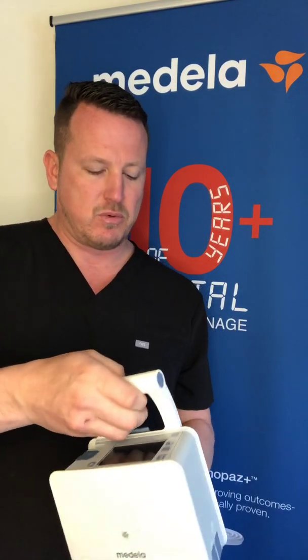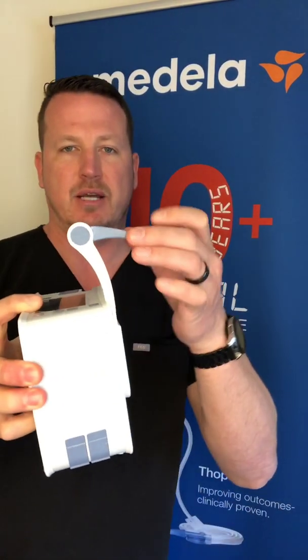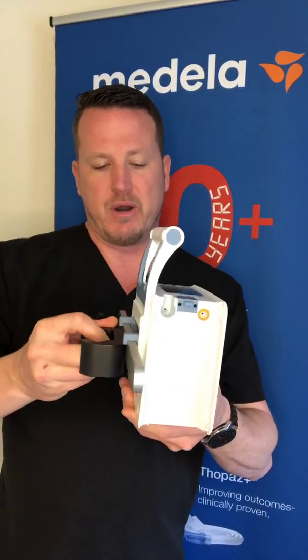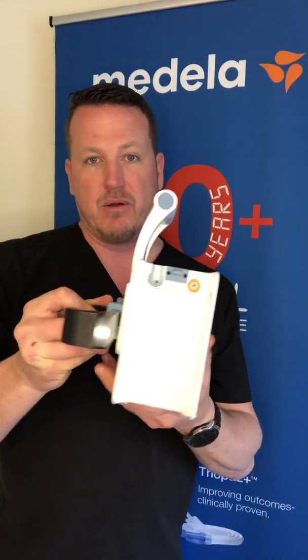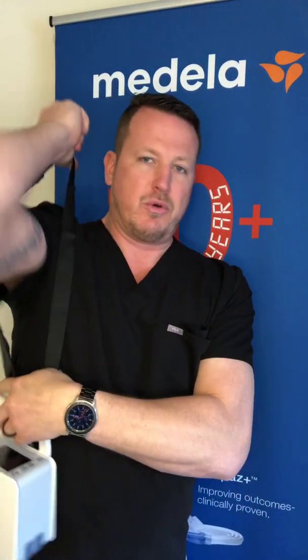The device also comes equipped with a bed rail holder that pops out of the handle, and two clips that rotate out from the back of the device that can be utilized using a rail adapter on an IV pole, a bed rail, or walker. There is also a carrying strap that can be situated right underneath the carrying handle and placed over a patient's shoulder for easy ambulation.